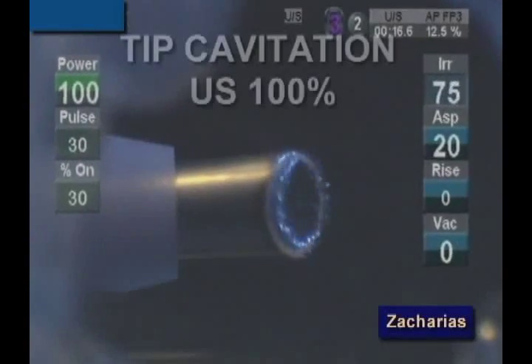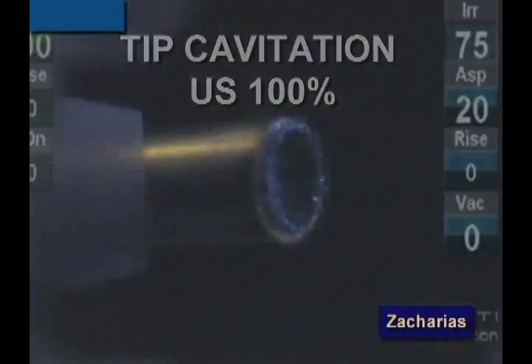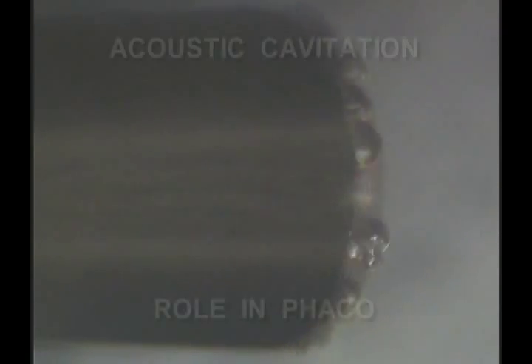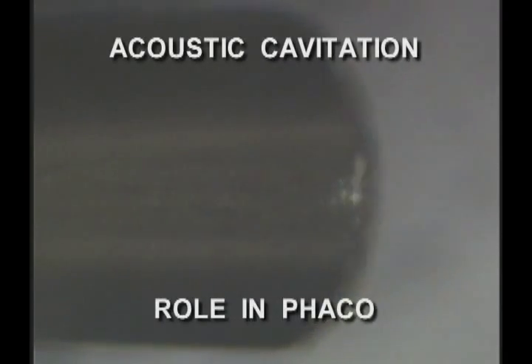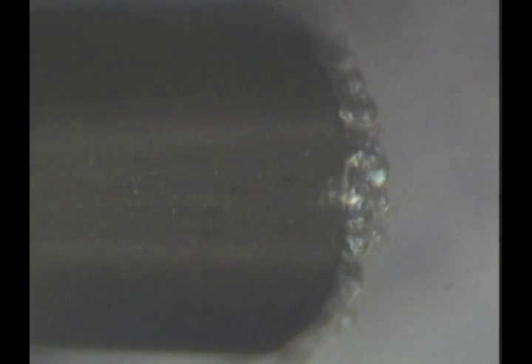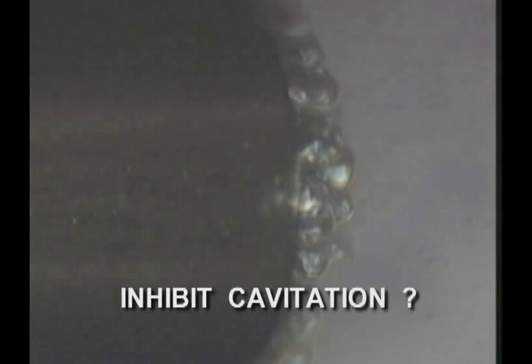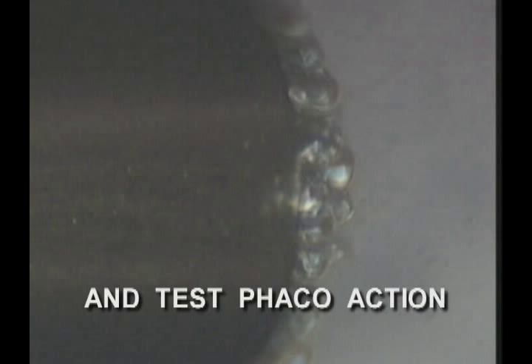Having clearly documented the cavitation activity typical of phaco probes, our next challenge was to determine the relationship between cavitation and phaco emulsification. Our idea was to find a controllable way to inhibit cavitation and then determine the effectiveness of phaco under suppressed cavitation conditions.